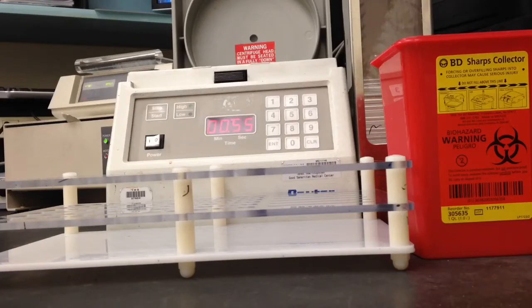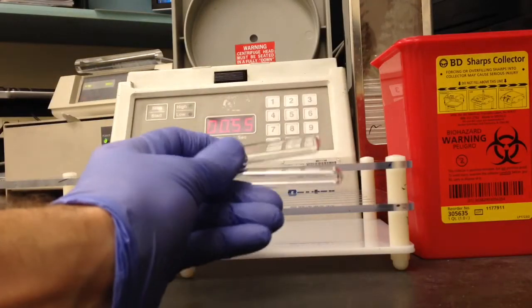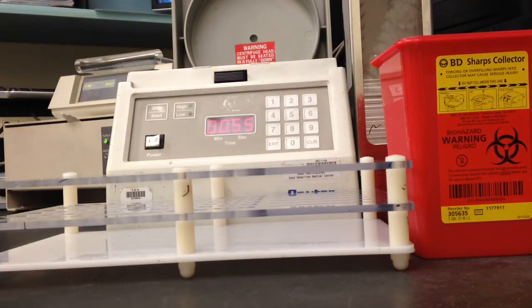In this video I'm going to show you how to perform a manual cell wash. For this you're going to need some tubes. For my specimen I'm going to use a seg from a unit.